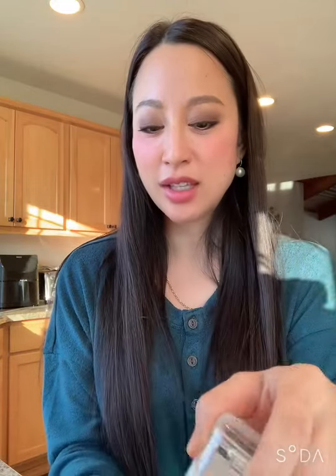Other than that, I'm going to get another one of these. I did read the instructions, I promise. It's just that I got so paranoid about fungus and mold growing in it that I just didn't want to make myself sick with my own nebulizer.